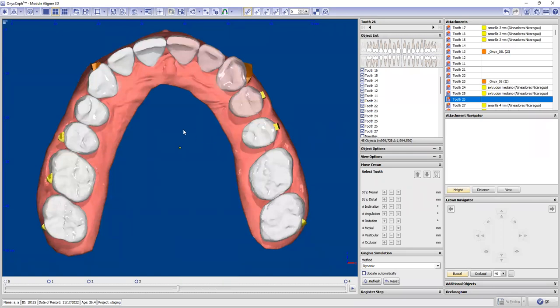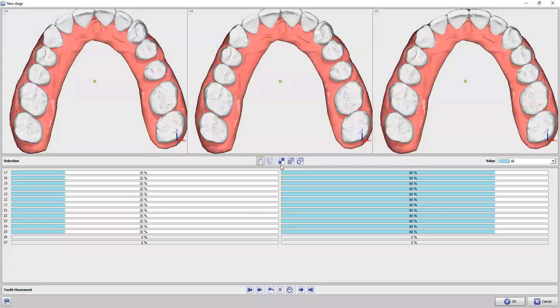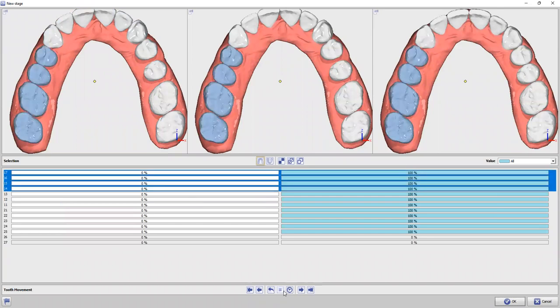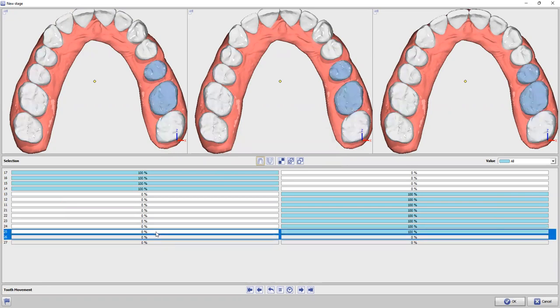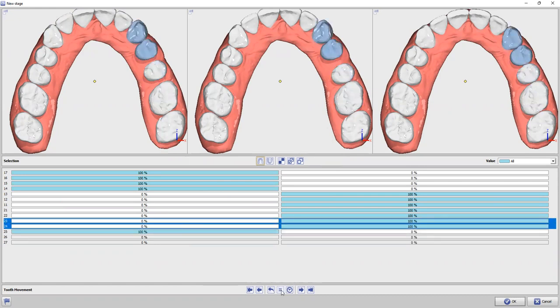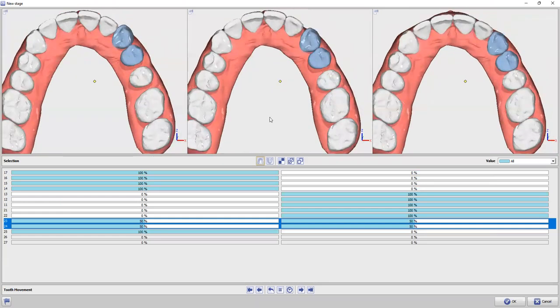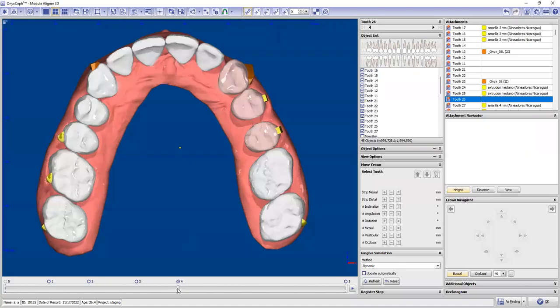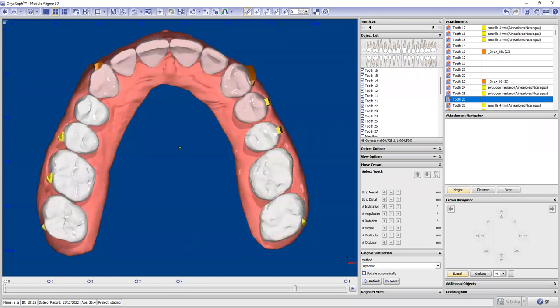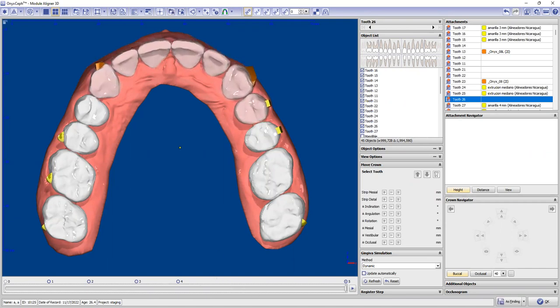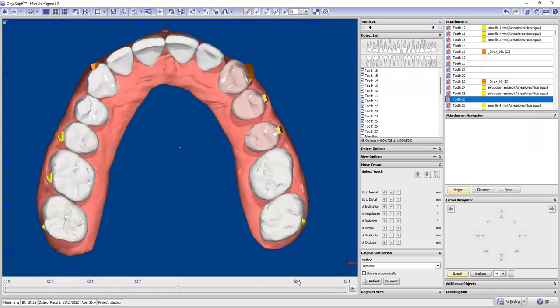Let's go to the next staging. Over here we already want to grab the canine a little bit. So again we go 100% here because we already finished this movement, then 100% of this premolar, and we tell this to go 50%. Now we're going to have simultaneous movement of this segment. You will have this type of staging. You can end the staging here because after this point you will have anterior movement as well - you will have enough space for the aligner to grab and wrap around the tooth. You've already made your staging.